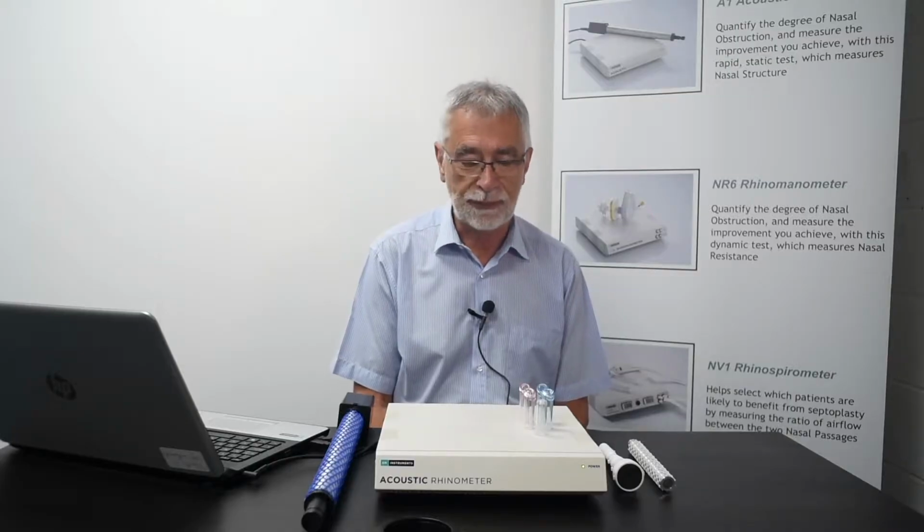I formed GM Instruments 25 years ago, and among the products that we've supported in that time is an acoustic Rhinometer, which I'd like to take you through today.